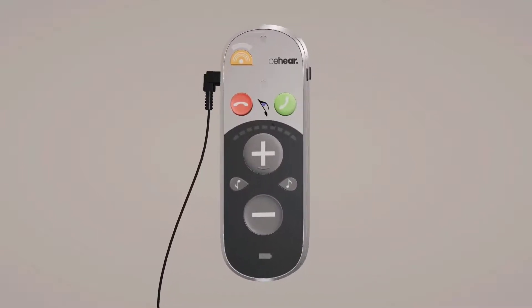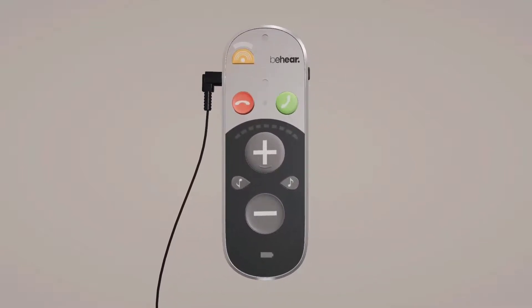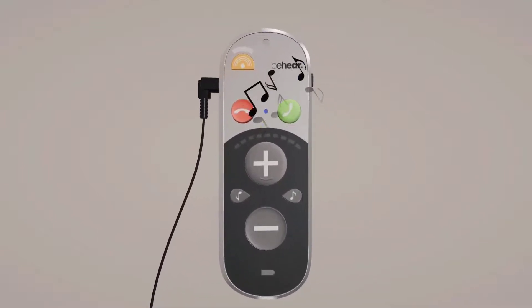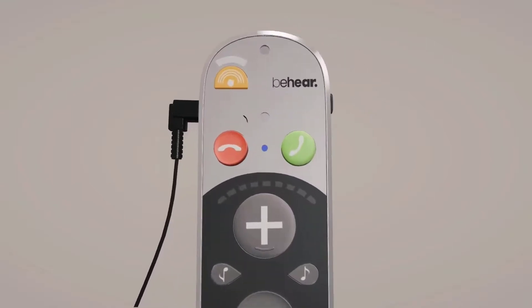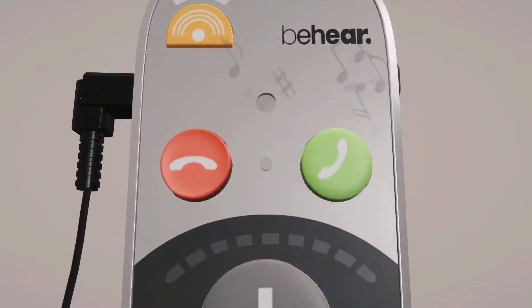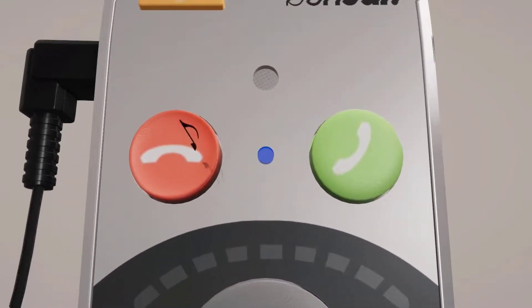If there is an incoming call, you will hear the ringtone via the headset and see that the main LED is blue.